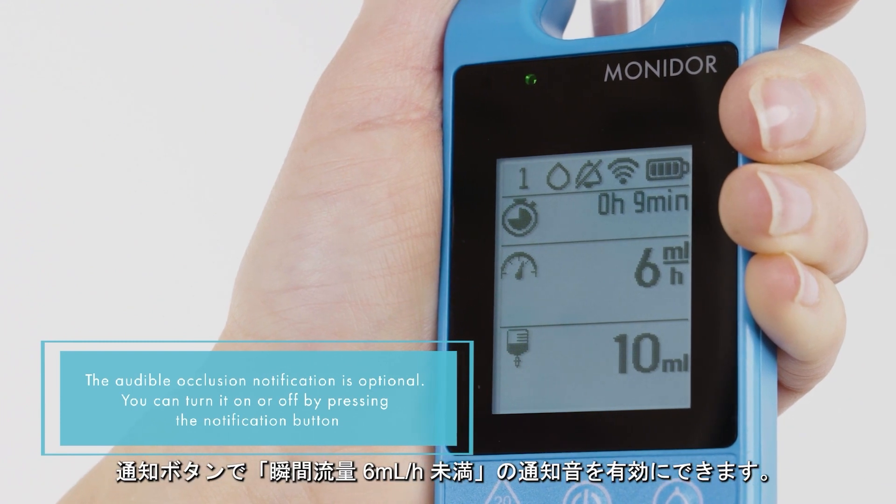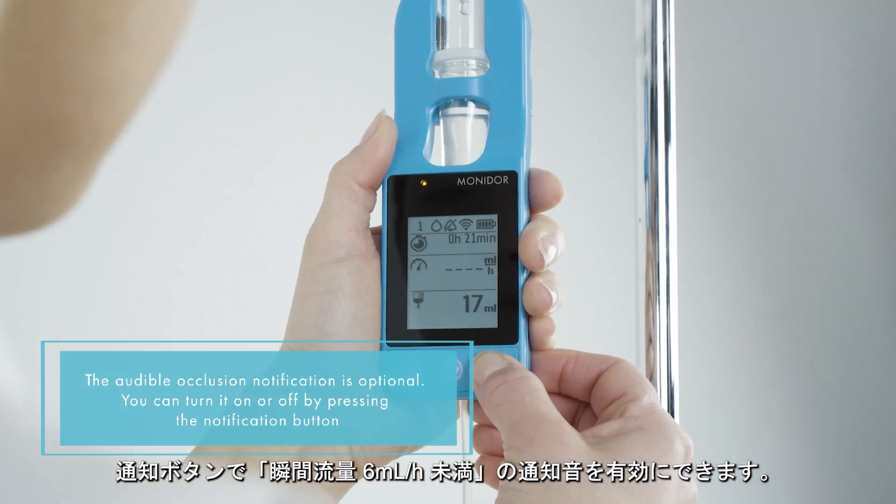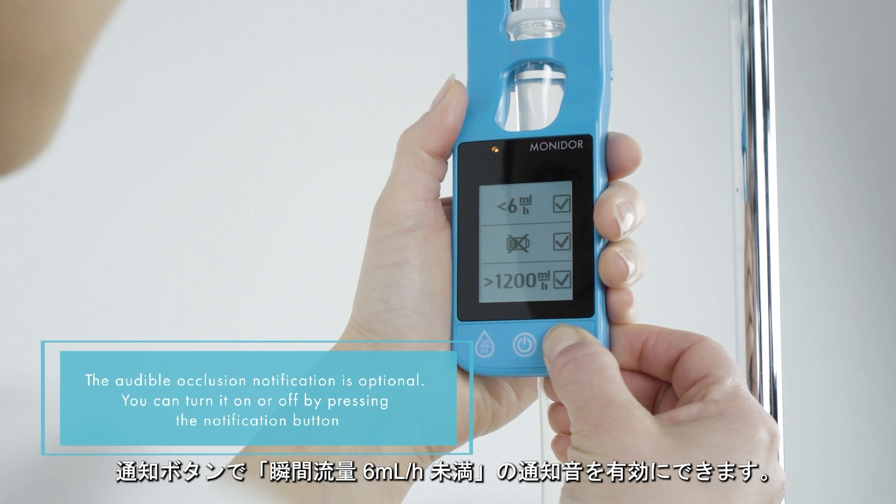The audible occlusion notification can be turned on by pressing the notification button.